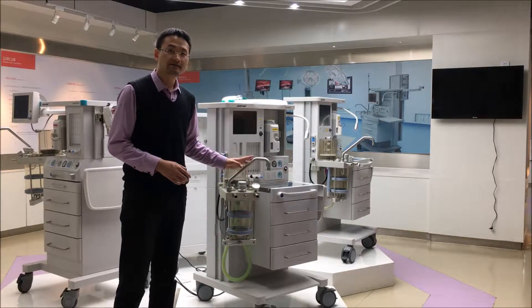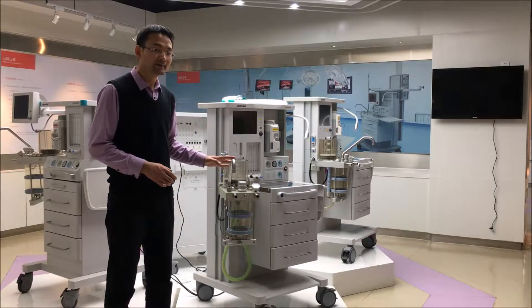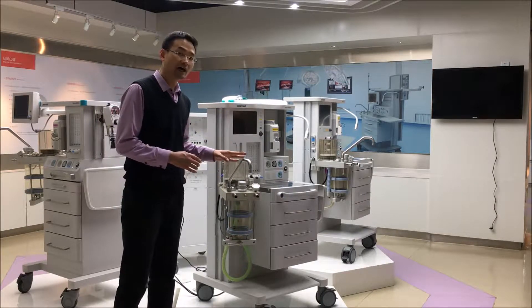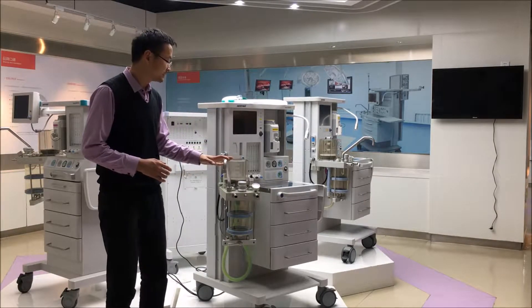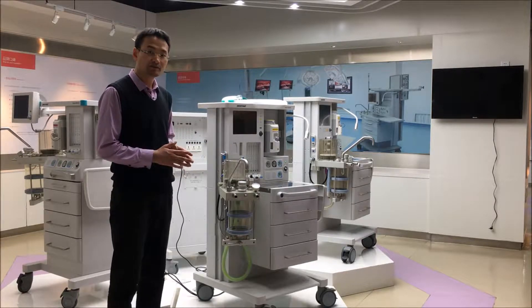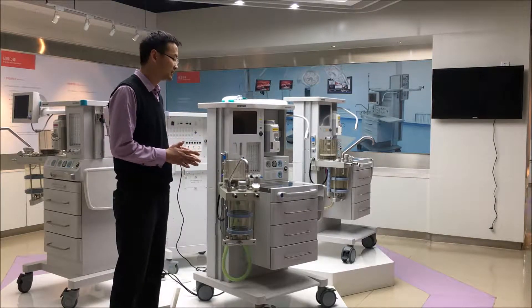The breathing system is very complicated and important in an anesthesia machine. So I will make two videos. In the first video, I will introduce the function. In the second video, I will introduce the engineering.